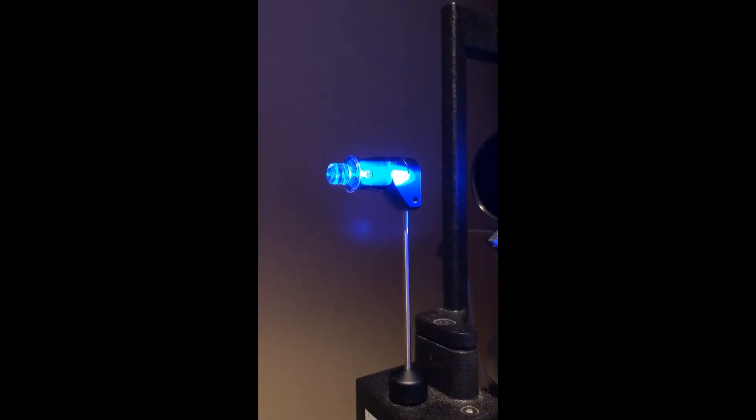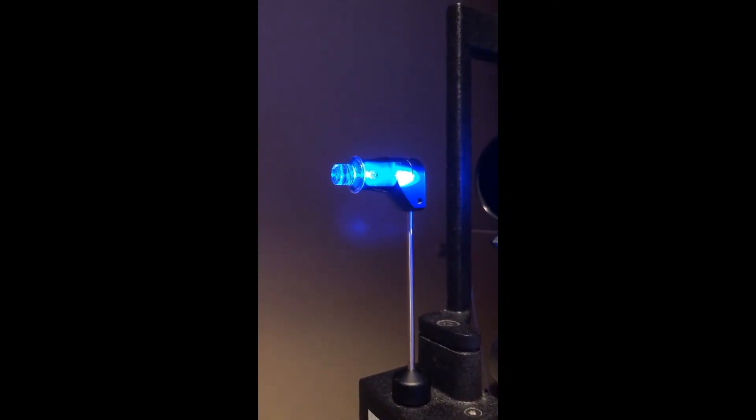For maximum visualization of your CATS tonometer mires, set the slit lamp illumination to 45 degrees from the tonometer tip.